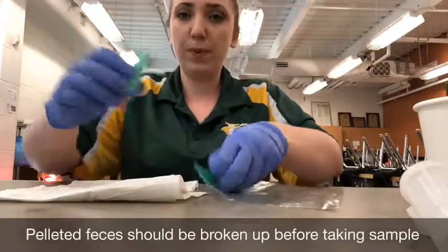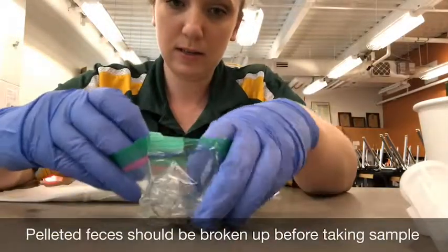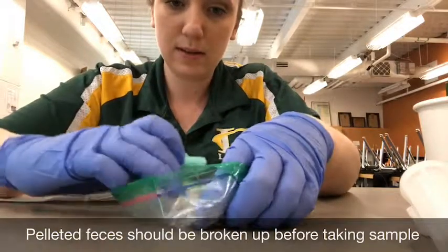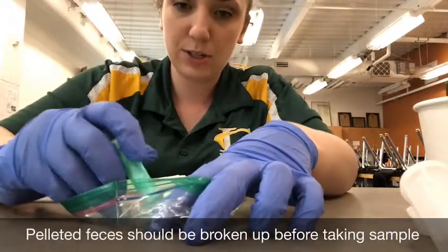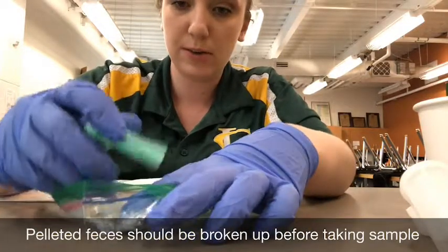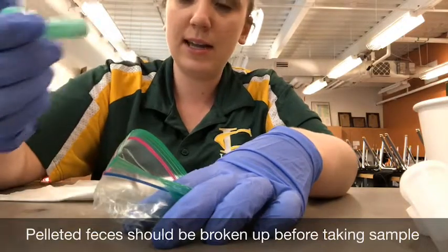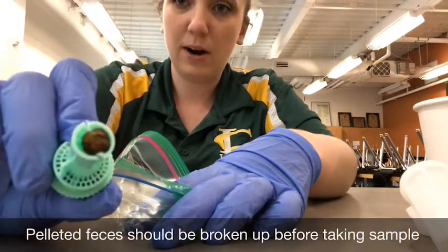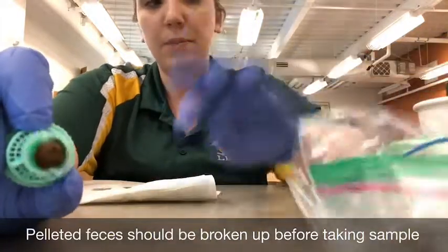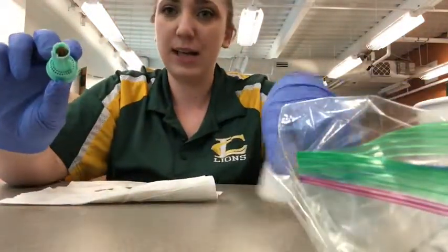So I'm going to go ahead and open our bag of the sample. Make sure I have access to it. Try and get a section without debris, which is a little bit easier with a rabbit sample. And I just press down on it and it essentially picks up our little fecal pellet here, the proper sample size for the fecal test.